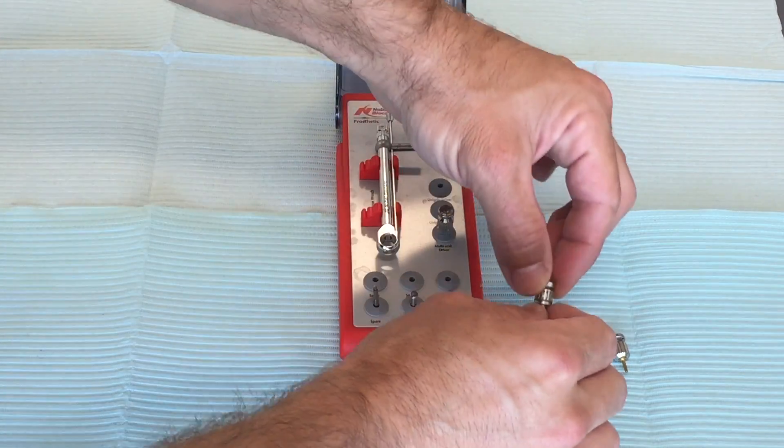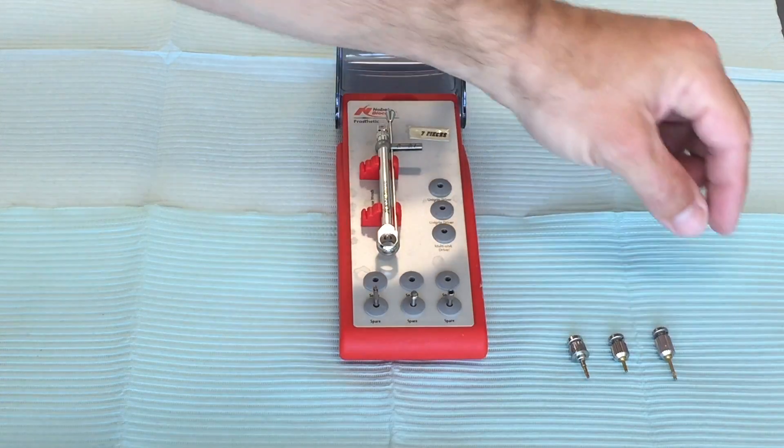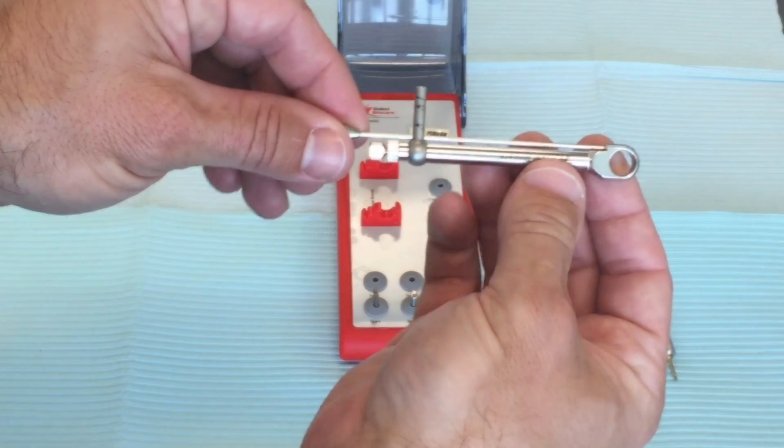You should only need the drivers themselves when making an impression. You shouldn't really need the torque wrench until you're delivering your final prosthesis.